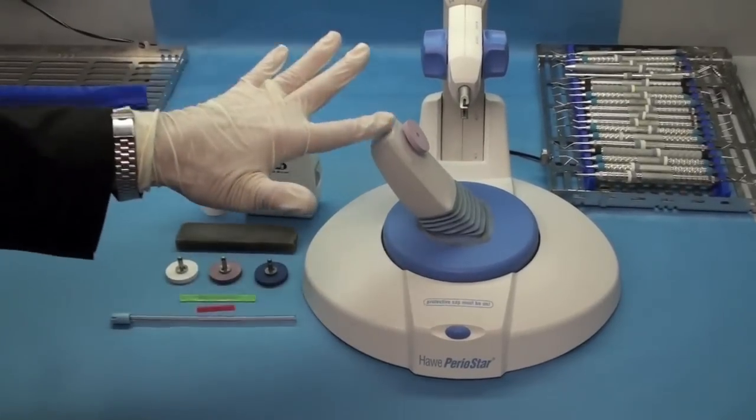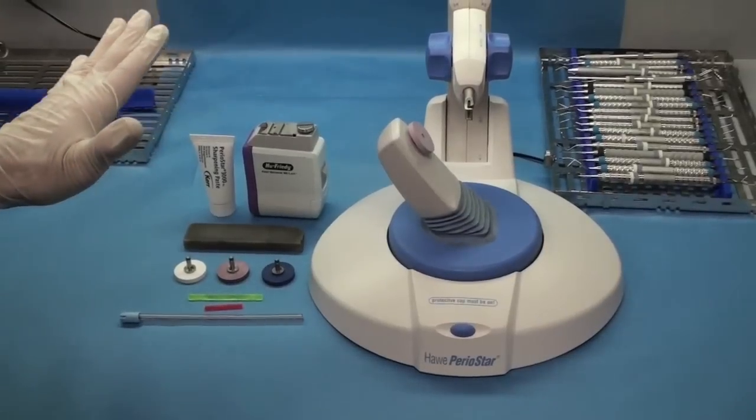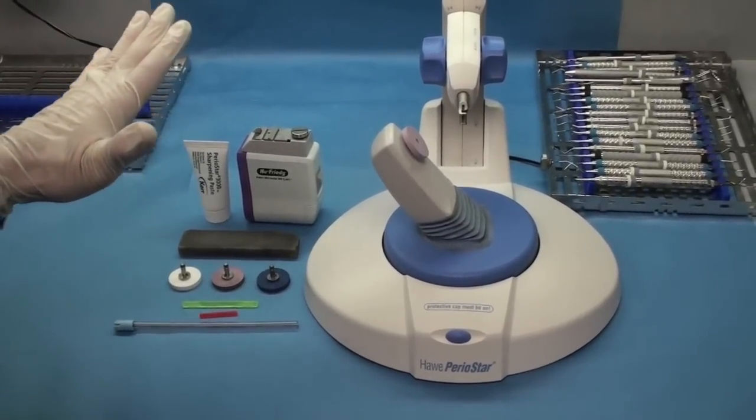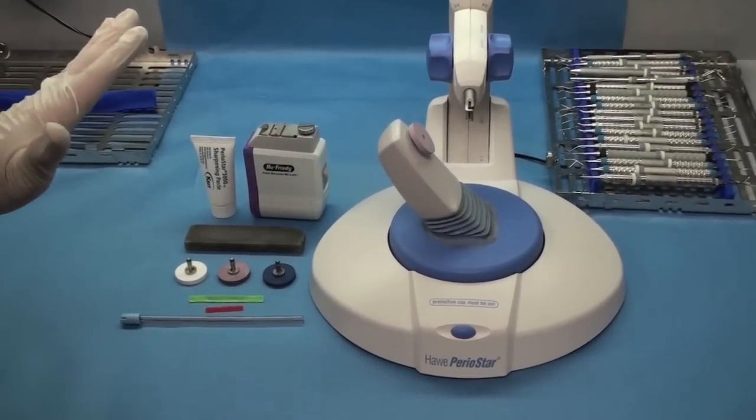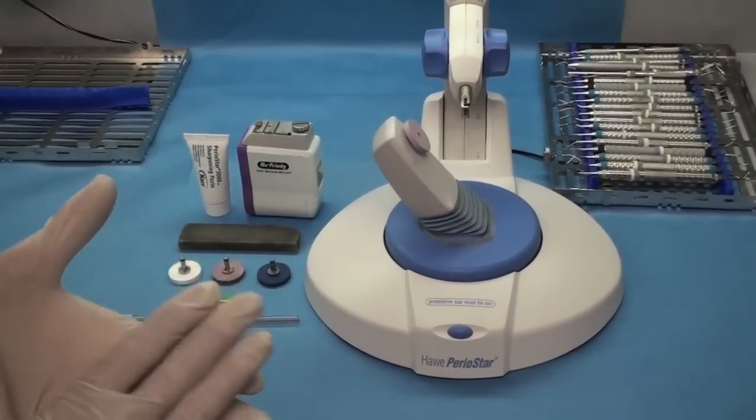The two electric instrument sharpeners, remember that they are electric, so they will get an edge up much faster than with a hand stone. So you have to be very careful. You don't want to over instrument because you'll wear off your blade.